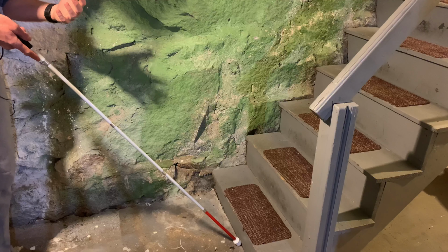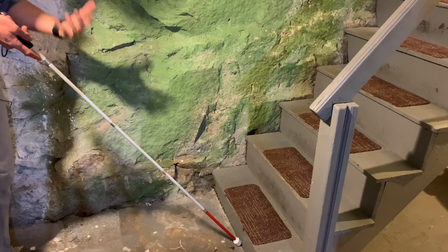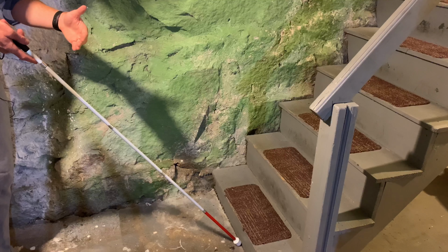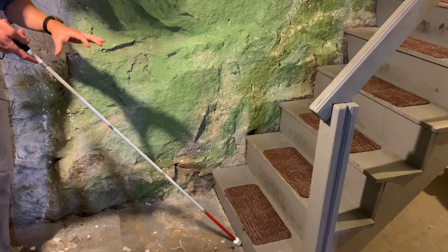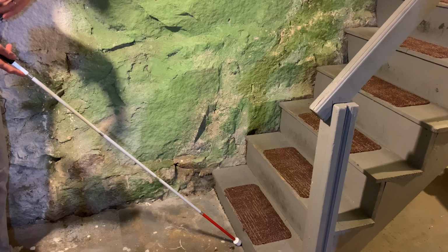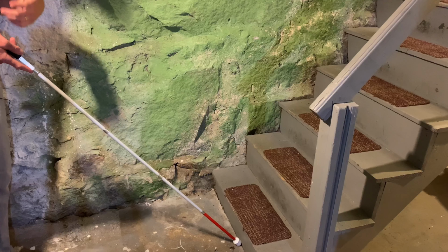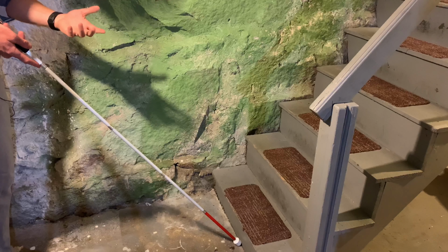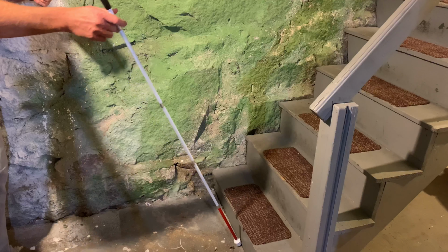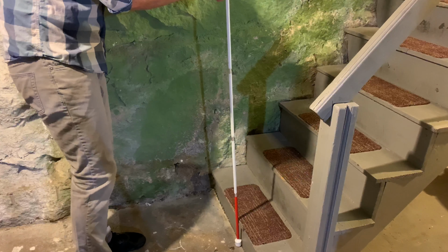All right, so now for step two, after you've located the stairs, you're going to want to anchor your cane and bring your cane up vertical. So right now my cane tip is at the junction between where the first step goes up and the floor. And I'm going to bring the cane up to vertical, but to do that, I'm going to need to switch my grip in the process. When I was approaching the stairs, I was doing index finger grip, and now that I want to bring my cane up vertical, I am going to switch to pencil grip. So I'm going to switch to pencil grip here, bring my cane up vertical, and start approaching the stairs.